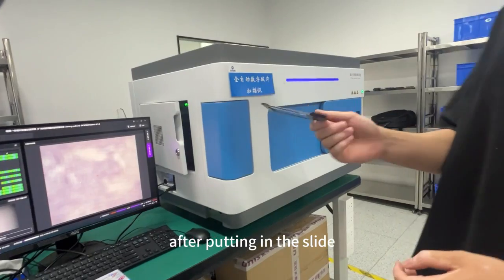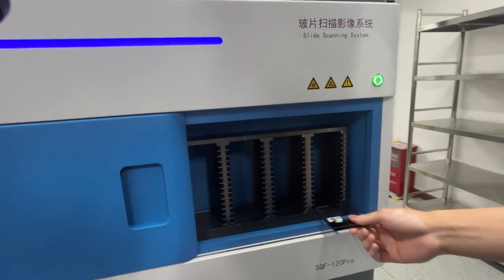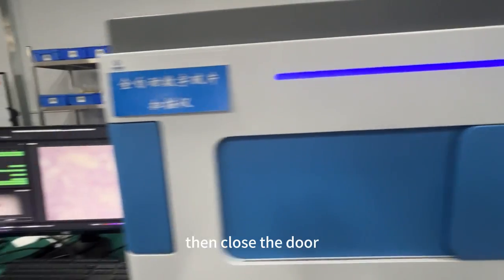After putting in the slide, we put the clip into the scanner. You can put it in any position of the rack as you want. Then close the door.